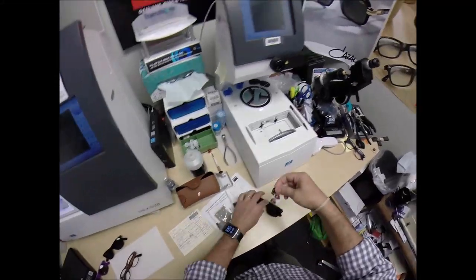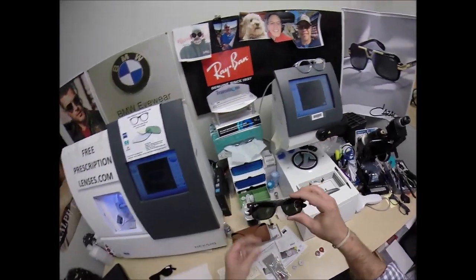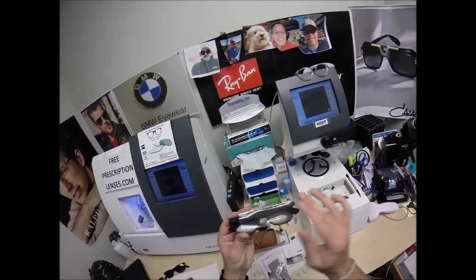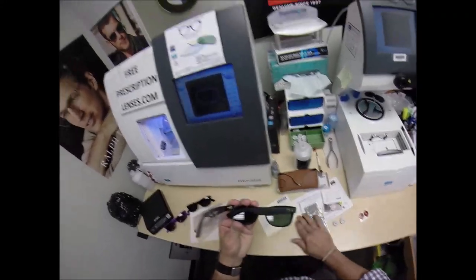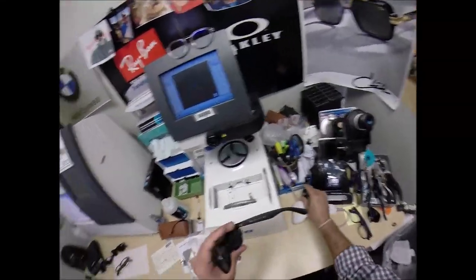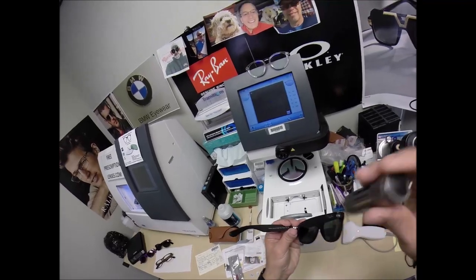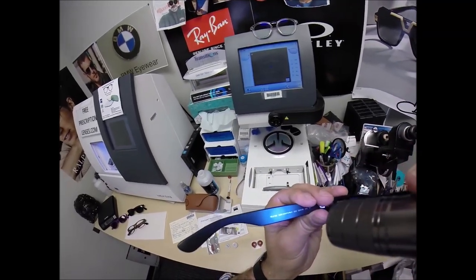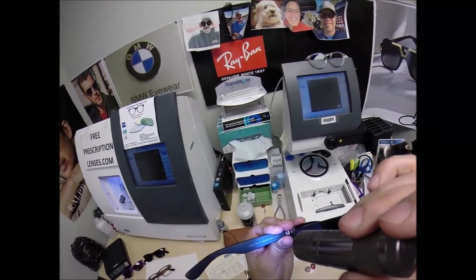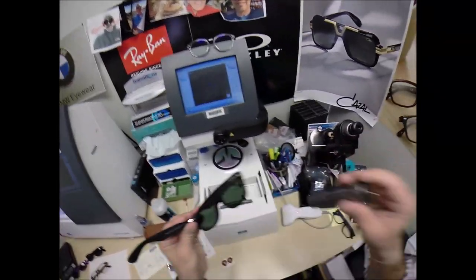Your G15 sticker that comes on these frames. Of course, all of them come with a little plastic sleeve on the left temple to protect the temples from rubbing together during shipping, and I'm going to put that on there when I ship to you. These are the Ray-Ban 2132 New Wayfarer, color 622, size 52 eye size, 18 bridge, 145 temple length.